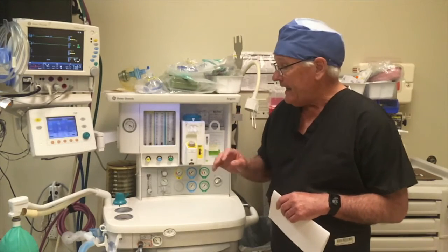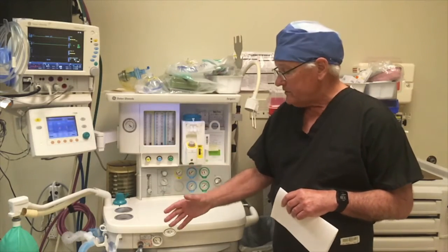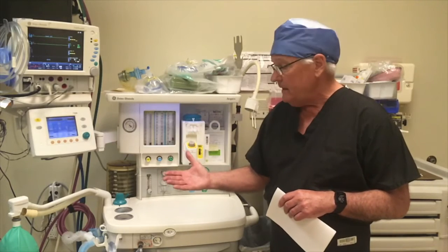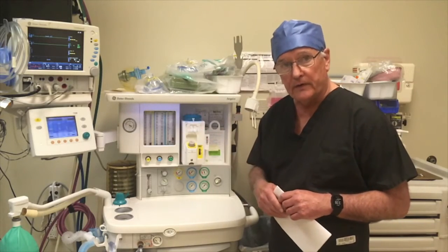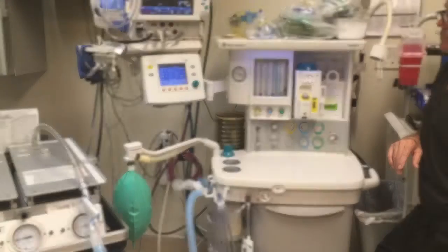at the bedside. And the anesthesia ventilator is much more prone to obstruction, to valves that stick, to humidification accumulating within the system, and by virtue of that requires much more frequent checks than a standard conventional all-purpose ICU ventilator. So frequent rounding and checking on the machine is really essential.